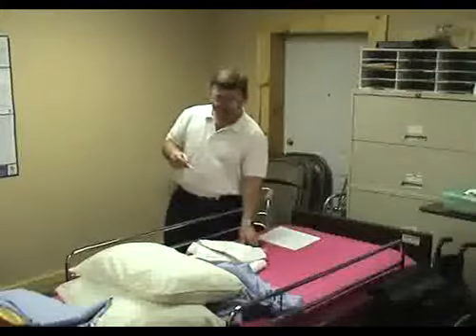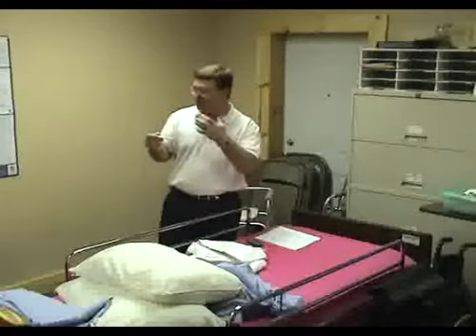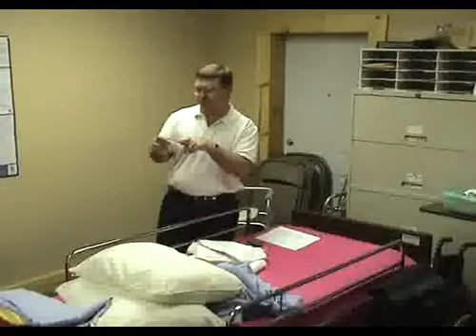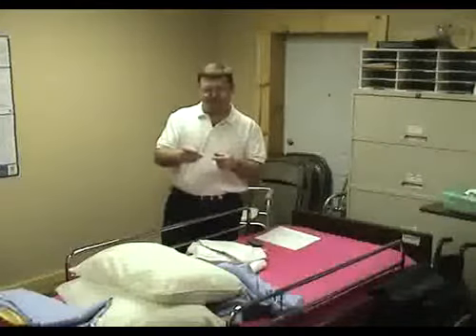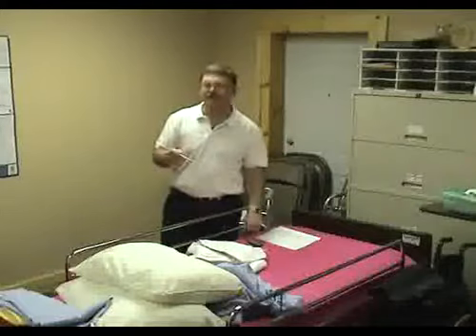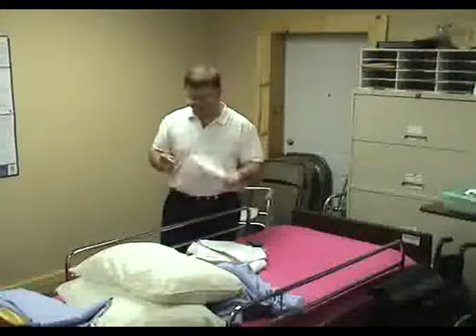Second of all, normally you use a thermometer when you're sick. So if you're sick and you put this in your mouth, the bacteria that made you sick could be on here now. So you don't want to use it on someone else, or use it back on the patient again. They've already had their antibiotics. You used this last week. Now you want to put it back in their mouth again without cleaning it? You might get them sick again. So that's how to prepare a thermometer.